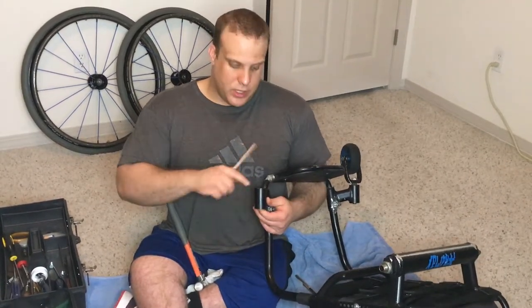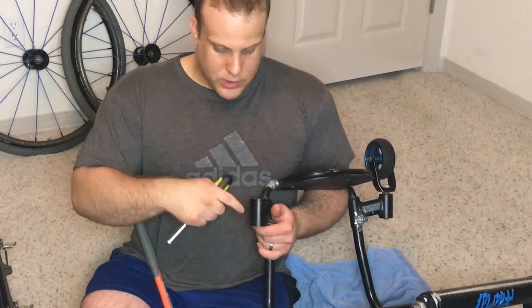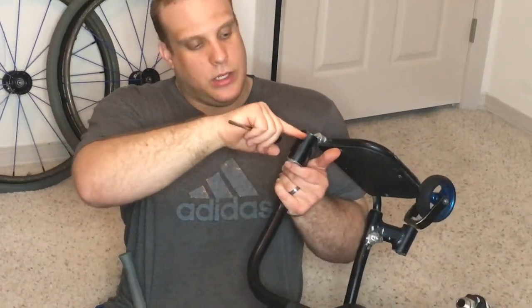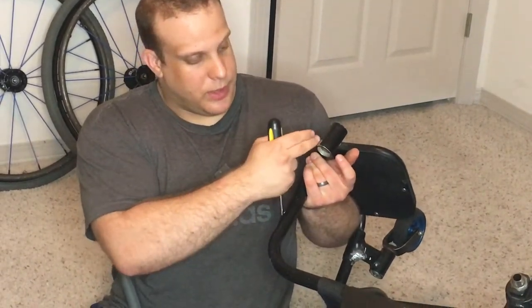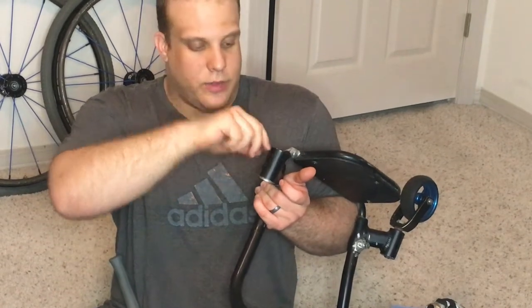This next part can get a little tricky depending on how rusted out and corroded things are. I forgot to mention — you need some sort of screwdriver or something that will fit into this sleeve here. On mine, there's a bearing on the bottom that fits into a little lip on the inside so it can't go all the way through. And vice versa, on the top there's one too and it sits on a little lip in there as well. So these don't have anything that holds them in, but they have that little lip that stops them from going all the way through.